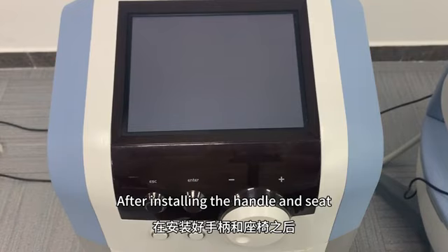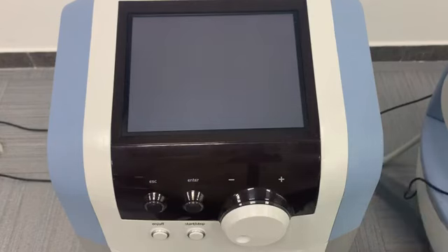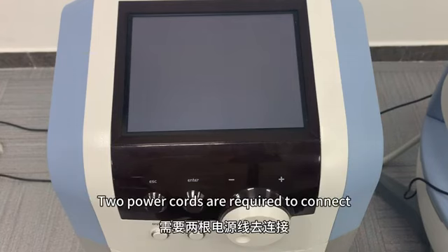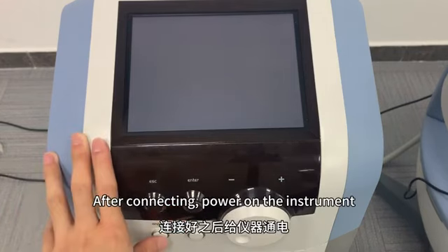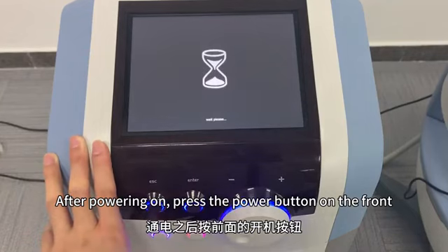After installing the handle and seat, connect the power supply of the instrument. The power supply of the main unit and the chair are separate. 2 power cords are required to connect. After connecting, power on the instrument. After powering on, press the power button on the front.